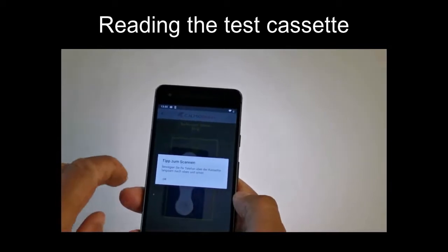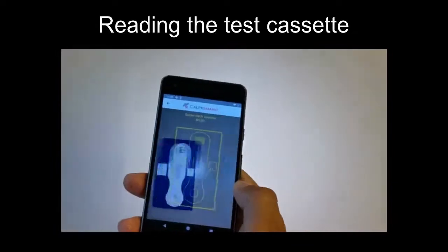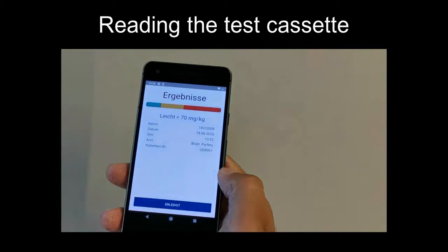During this step, avoid placing the test cassette on shiny white surfaces when reading it. If you have difficulty reading the test cassette, it might help to change the place. Once the app finds the right angle, it will automatically take a picture and you will see the end screen with your test results and a color-coded bar to show you where the results fit into the scale. Keep in mind that any changes in treatment procedures should be done by a trained professional. The results are automatically sent to your consultant or nurse for follow-up.